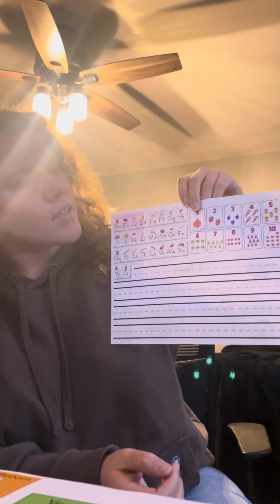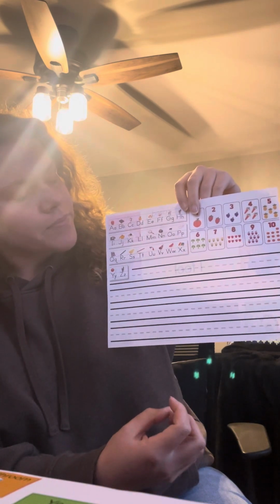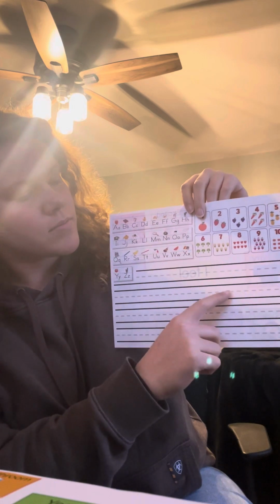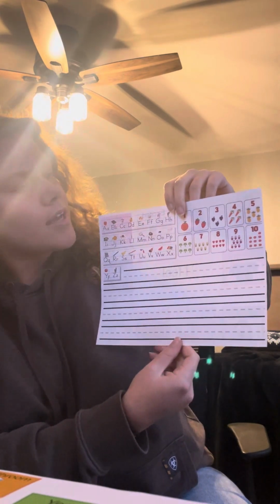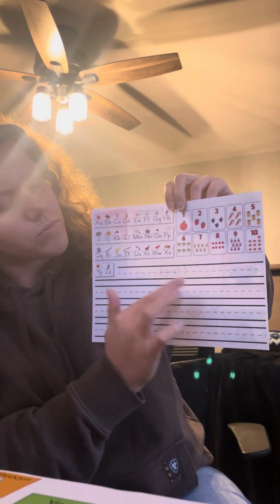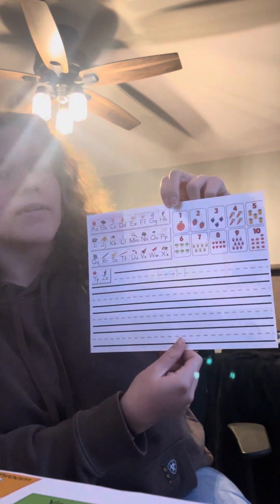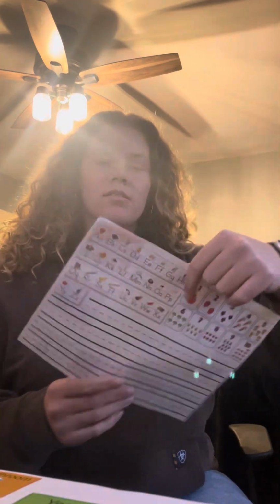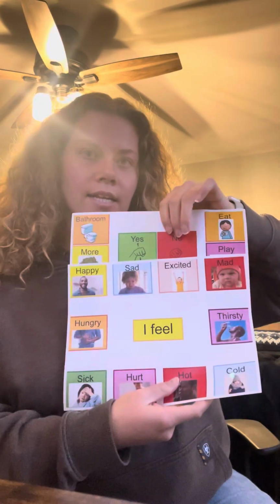With this being laminated, it would be like a cheap whiteboard. I know that he is working on his fine motor skills, but I thought that he might be able to write on this because I didn't want to put sight words or anything just yet. I feel like that would have been a lot to look at, but he could do writing on here if he ever needs to write anything or work on writing his name. So that is Malik's AAC device for right now.